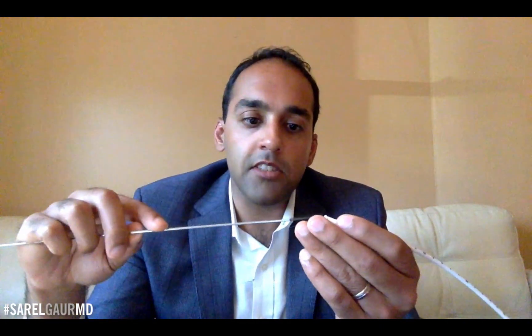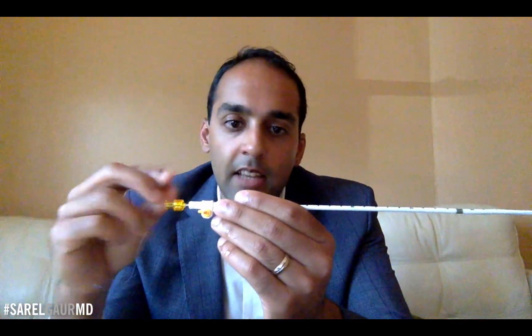If you're going to be placing this drainage catheter using trocar technique, then you're going to be using this stylet. I'm going to show how all these devices go together. Here's the drainage catheter at the back end — this is the metal stiffener, and you can see it actually goes right inside the catheter. So this is the drainage catheter attached to the metal stiffener. Coaxial means it goes right in the same plane of the catheter. I can actually screw these two together — this is a luer lock here. So now I have the catheter straightened and stiffened, and this is now ready to go into the body.